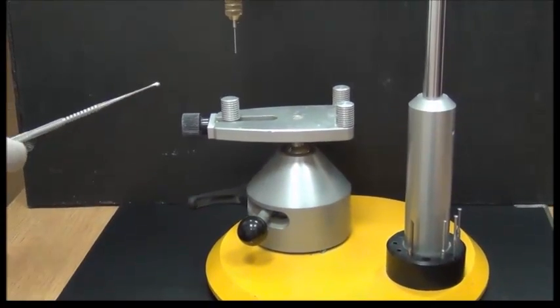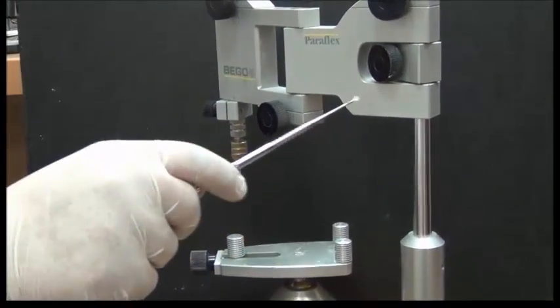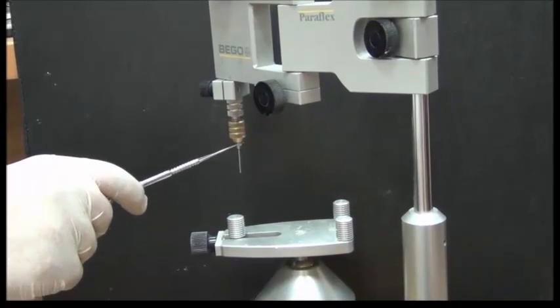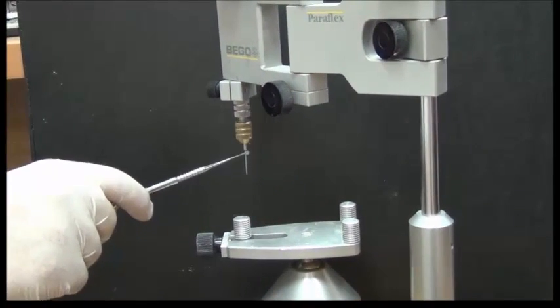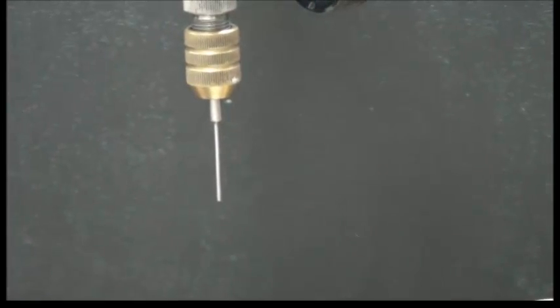So I need to make sure that the tool is coming down in a way that is controlled and fixed at all times. The only thing changing in this location is the location of the last instrument in this tool. And this last instrument at the moment is the analyzing rod. We will be talking about that in a moment.